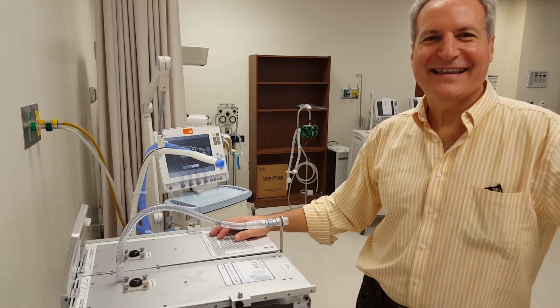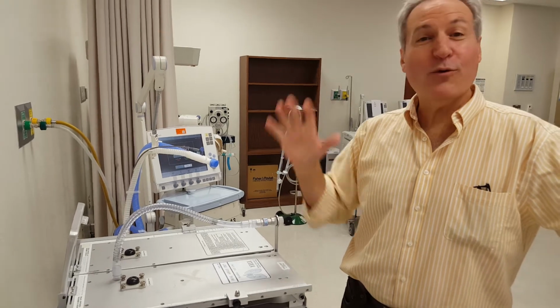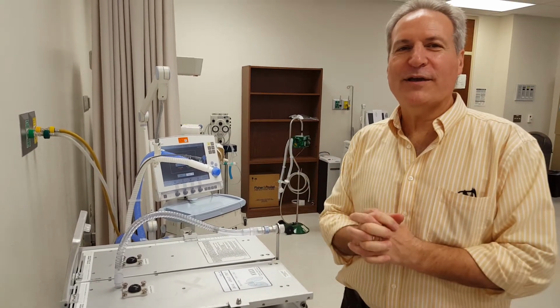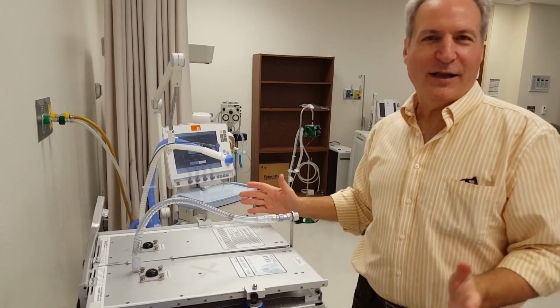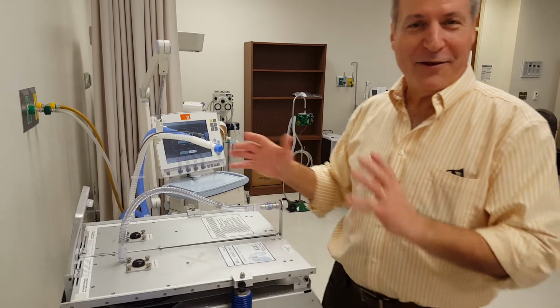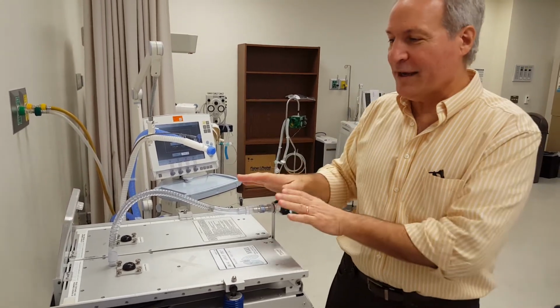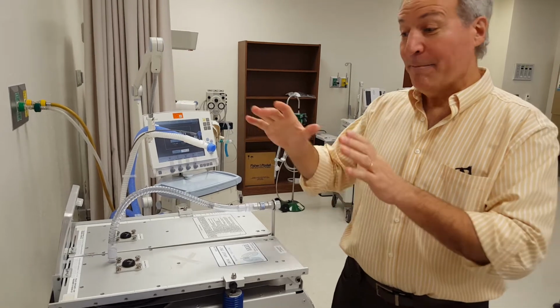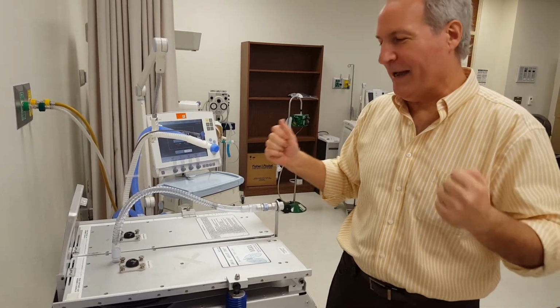So, our last piece of equipment or theory that we want to look at before we dig into the ventilator itself is our little lung simulator. Like we said, unfortunately, a patient doesn't come with all these adjustments and toys that we can play with so that we know exactly what their Raw is or exactly what their compliance is. But on the simulator, we have that power, godlike power.